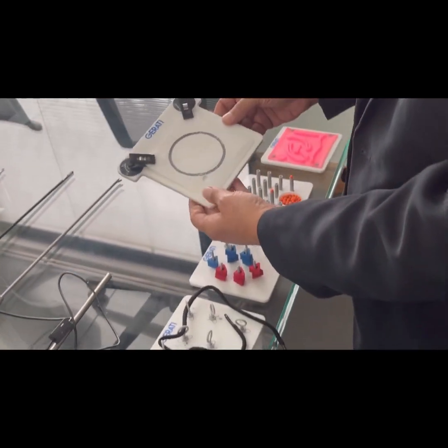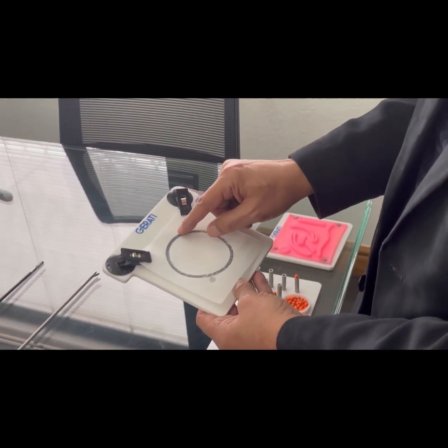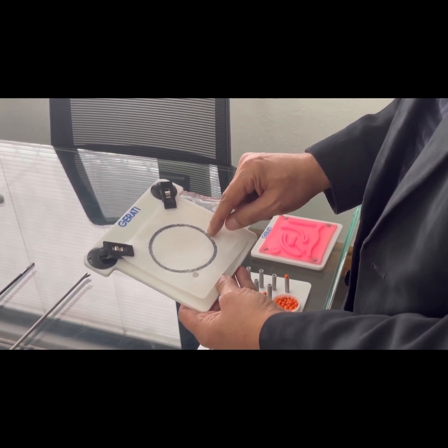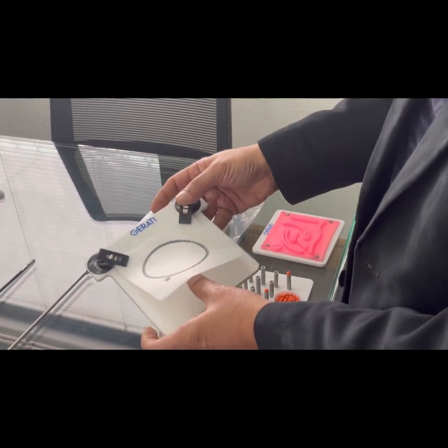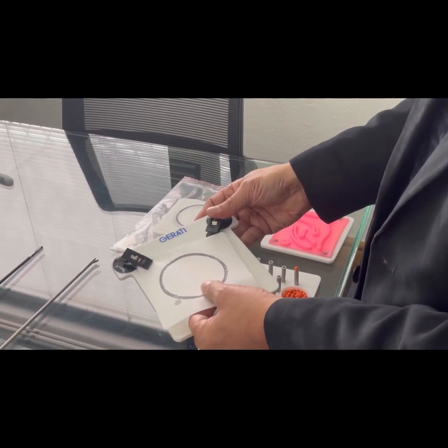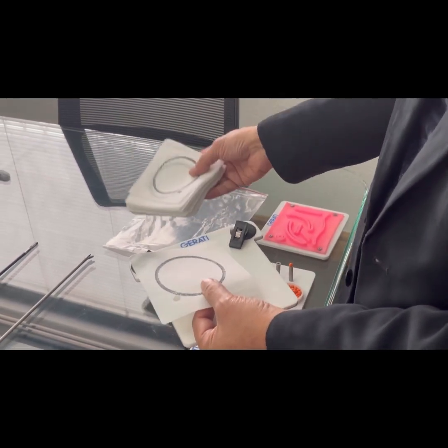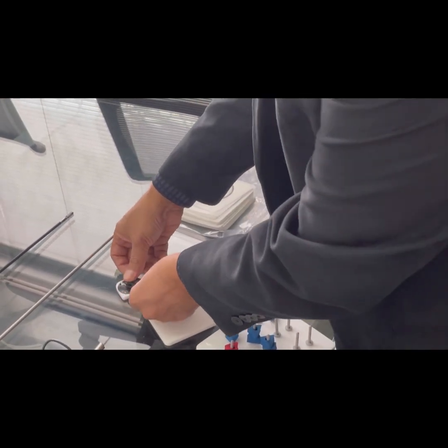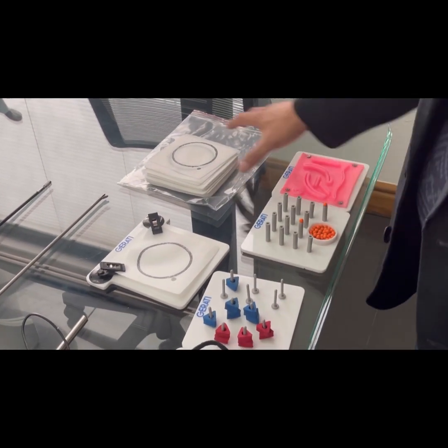In the cutting exercise, the user has to cut through a black ring, making sure the cut stays within the middle of the black ring and never goes outside it. This exercise provides 50 extra usable sheets and the sheets can be easily replaced using the clips.